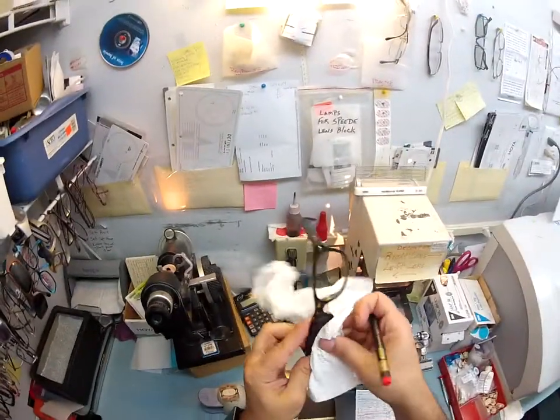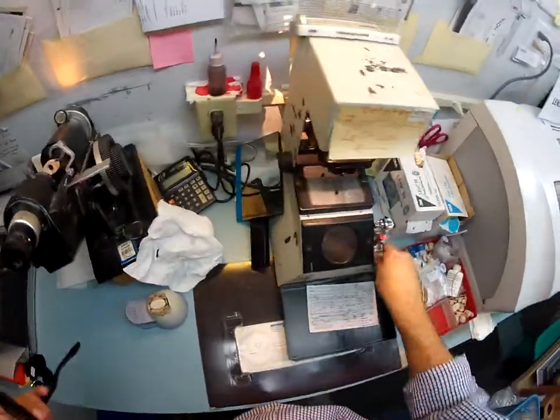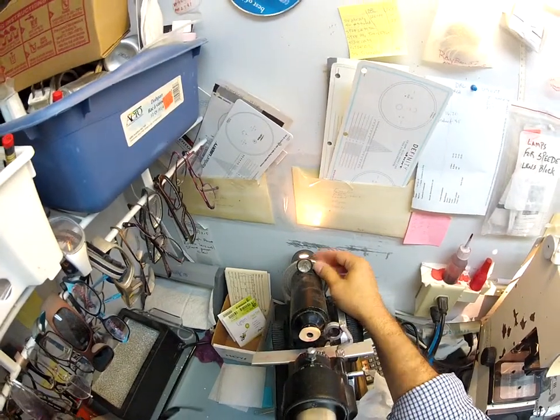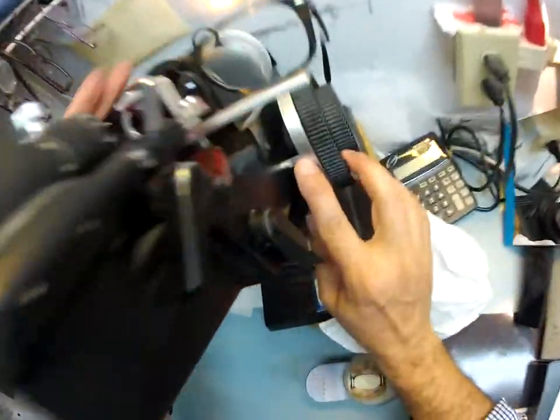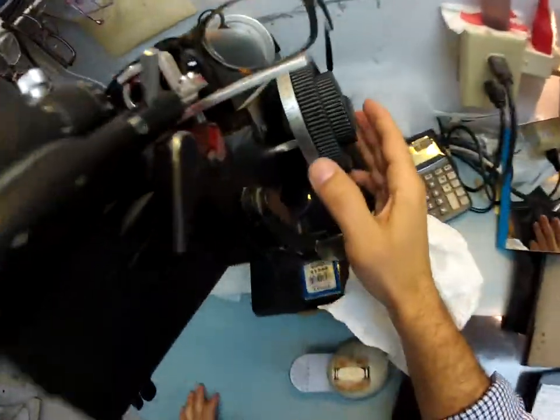I'm going to take that block off — it's no longer needed. I'll dry all that off and darken that red dot on your lens, as we'll need to measure that later. Now I'm going to spin the axis wheel back to 118, which is the axis of your right eye. Put the lens in over the red dot — we're reading plus 2, that's exactly what it is. Check your astigmatism correction — we're actually at plus 1 now, because plus 2 minus 1 is 1, and that is what I'm reading on the power drum. Hopefully the GoPro camera is good enough for you to see that.